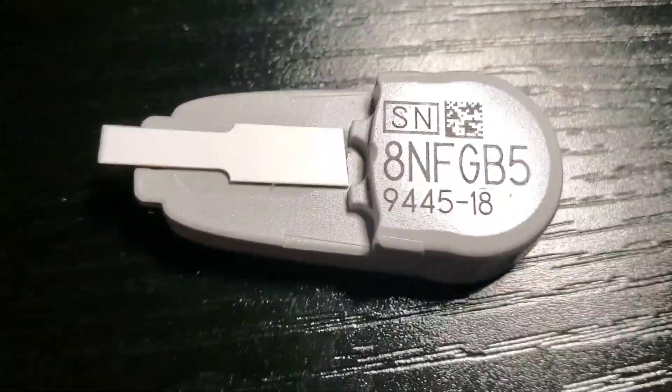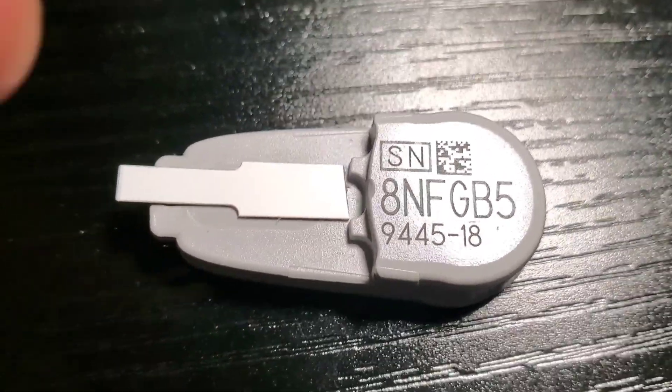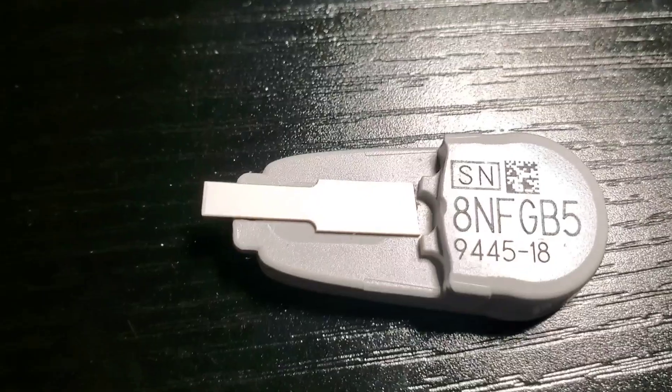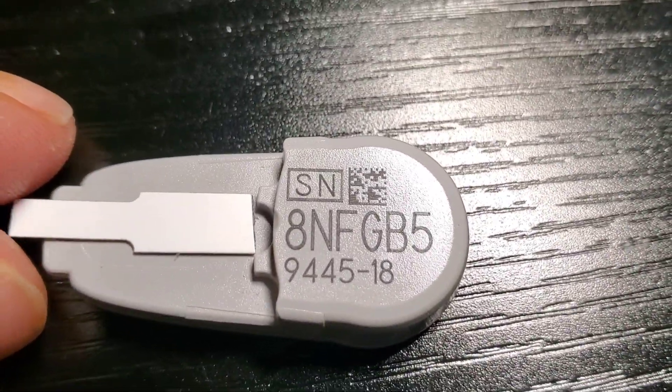It's holding, and the way it's sitting in the transmitter, there's only room for it to go in right here and then slide in. That's what you want to remember when you're doing it — go in straight. The wider the test strip, the better.